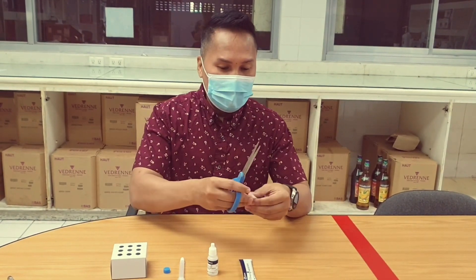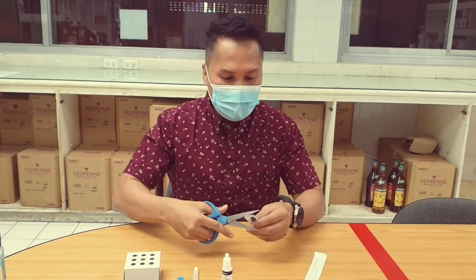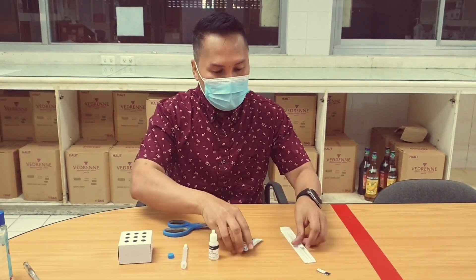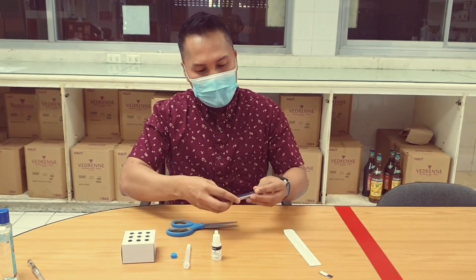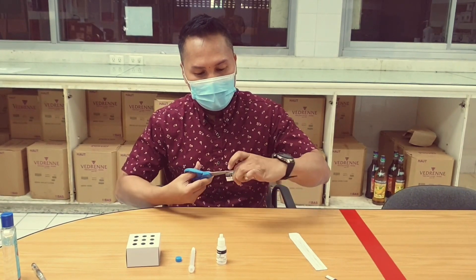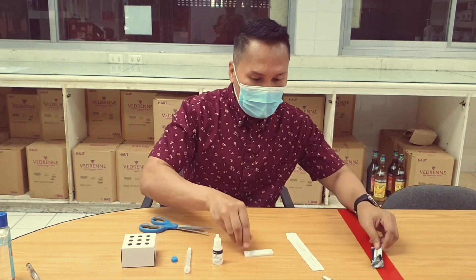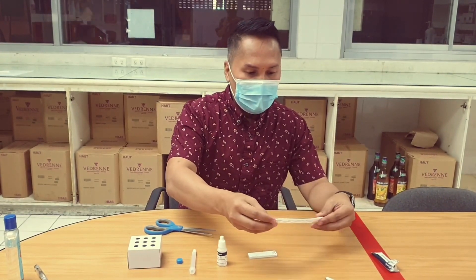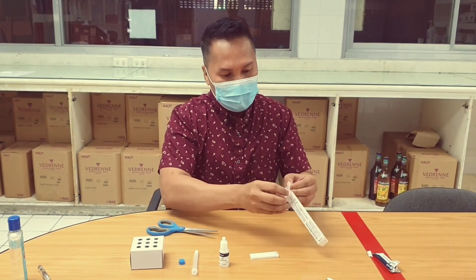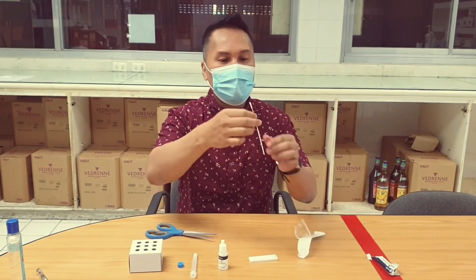Check and make sure that everything is properly sealed before opening them. This is the COVID-19 device, and this one is the swab stick — it's like a cotton bud that is inserted inside the nose.